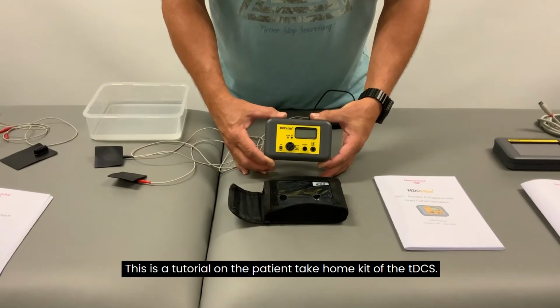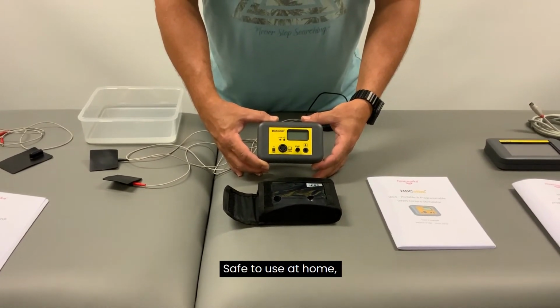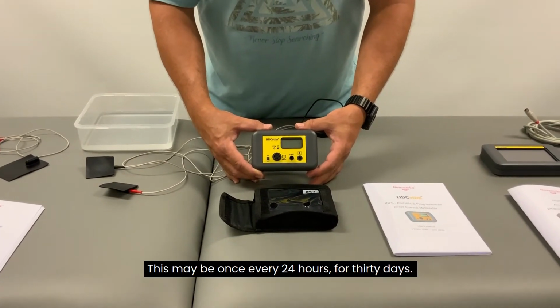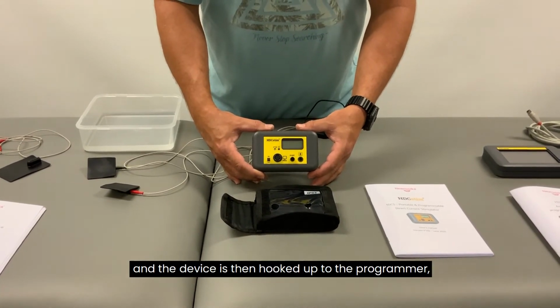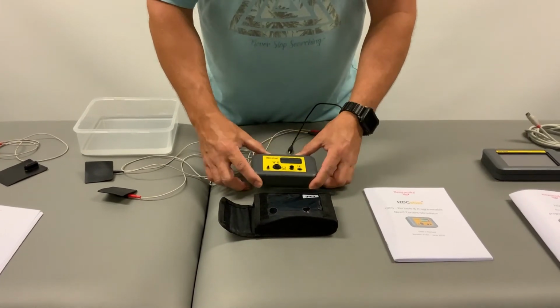This is a tutorial on the patient take-home kit of the tDCS. Safe to use at home, after your practitioner has programmed the device. This may be once every 24 hours, for 30 days. Then the patient goes back to the clinic, and the device is hooked up to the programmer. The report can then be obtained from the device.